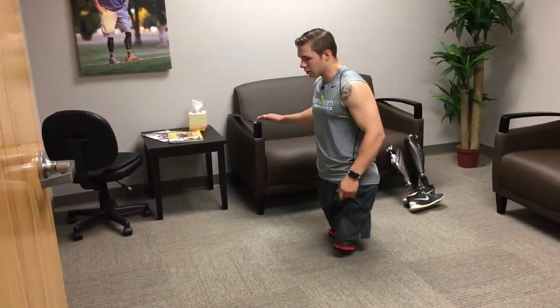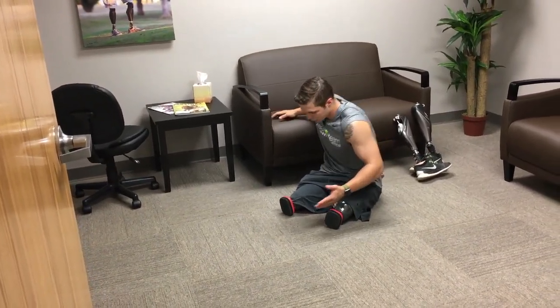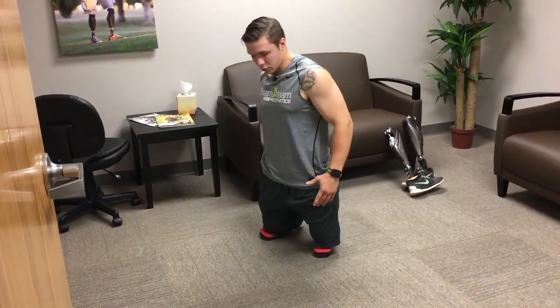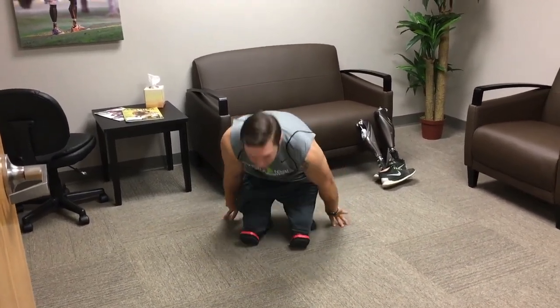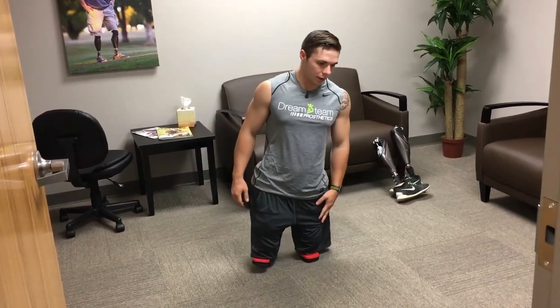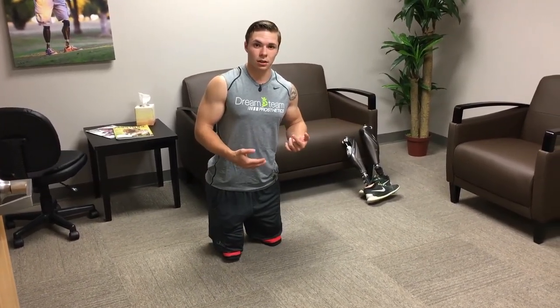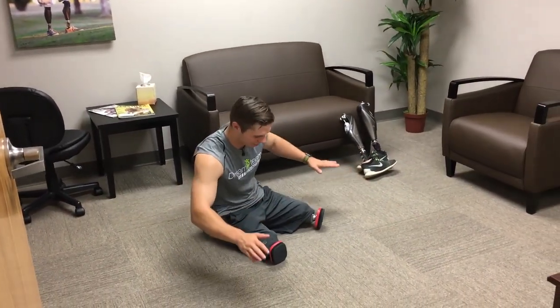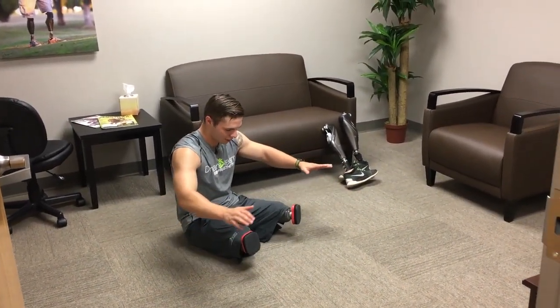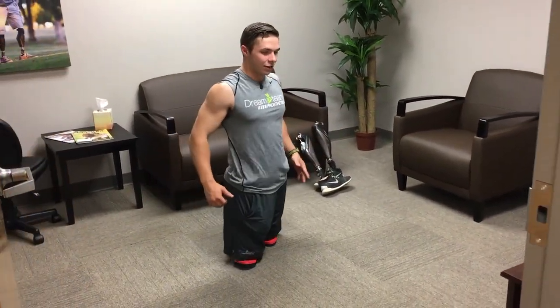There's a lot of exercises you can do with them at your house. You can go from sitting to standing — you just pop up. You can use something around you, or you can use your hands like this and help yourself stand up like that. Whenever you start to get a little stronger, you can practice going from sitting to standing without using any hands. It's really hard to do, but you just kind of pop up.